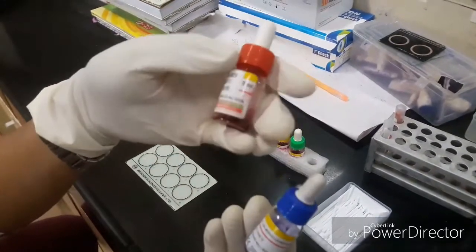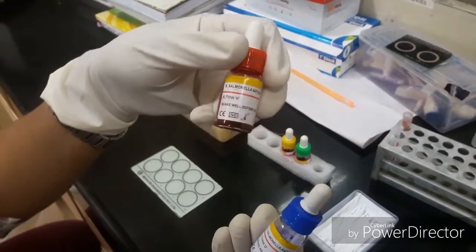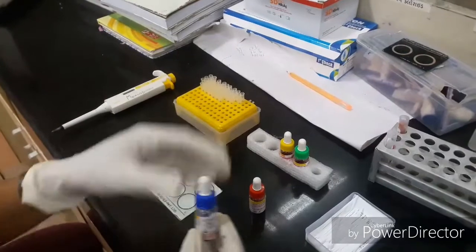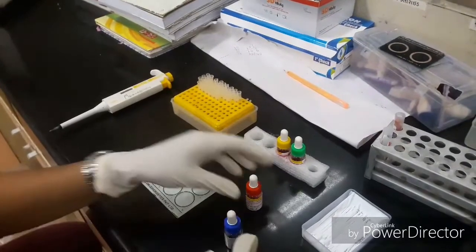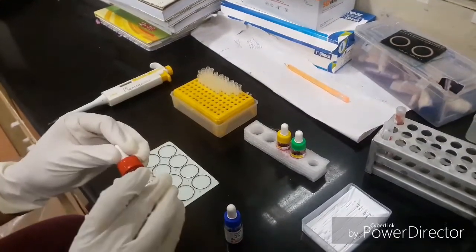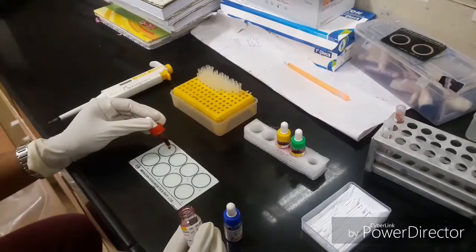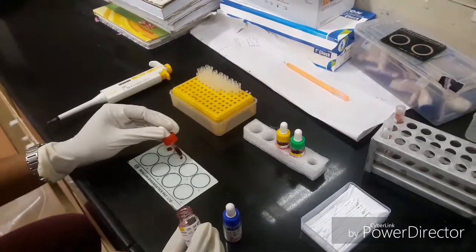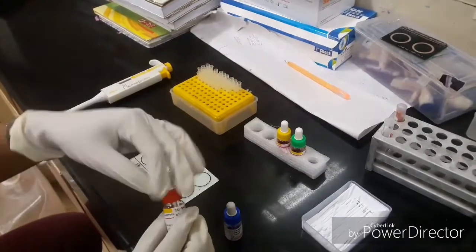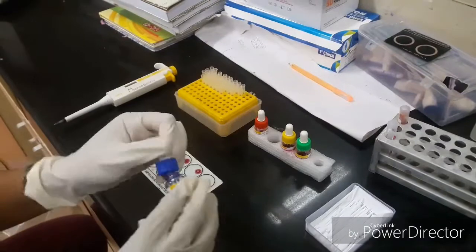Now we are adding O and H antigens. If paratyphoid fever is suspected and the result is positive, we will use AH and BH antigens instead.